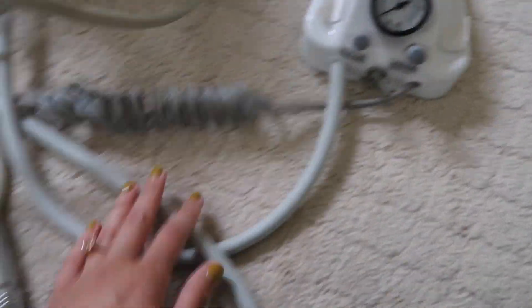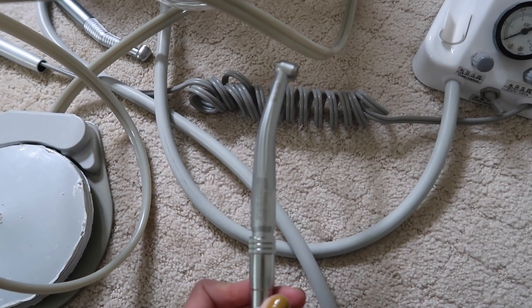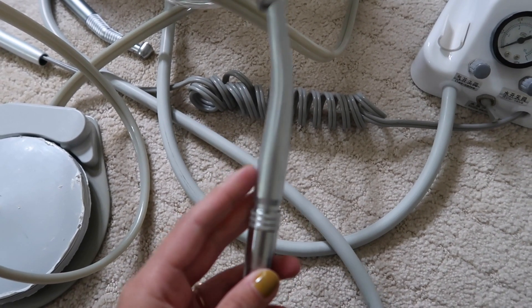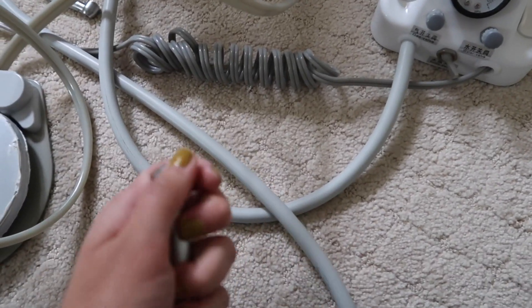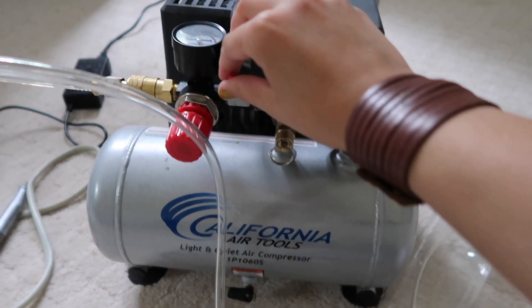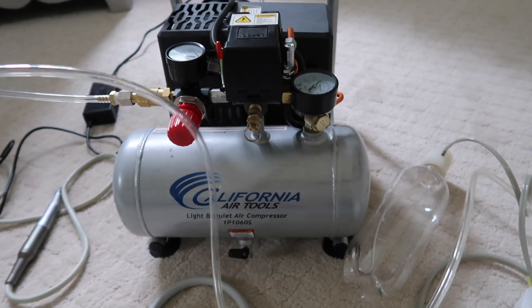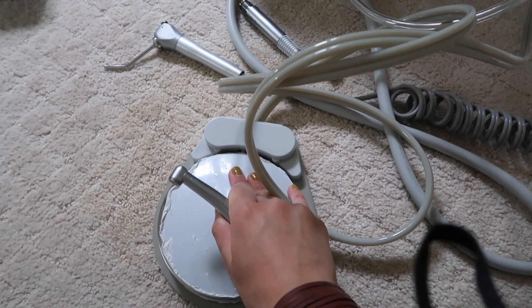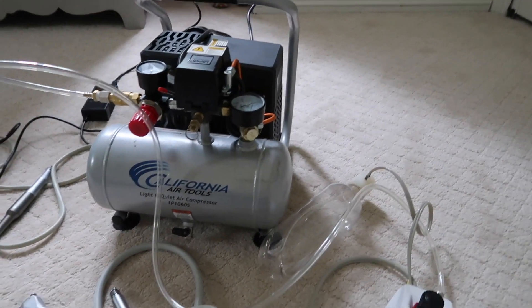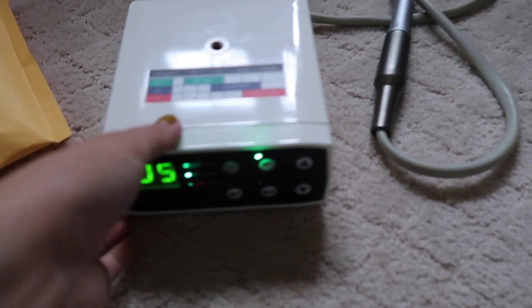I cannot imagine how you can use water in the house — I never used it. The handpieces are pretty cheap on Amazon, like $30 for three, so I started buying packs because I kept breaking them. But the real problem with this compressor is the noise. If you have kids at home, just listen to how it works — it is loud. They say it's quiet, but it isn't. Between the compressor and the handpiece together, this is not feasible for practicing at home if kids are sleeping.